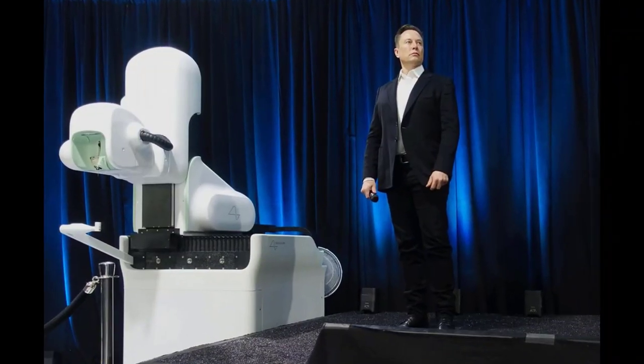Neuralink Brain Implant. The figure of Elon Musk claims to be a living legend in the world of technology. It is hard to argue with this today. Whether he is considered a genius, a madman, or an alien, the whole world is closely following the development of his projects.